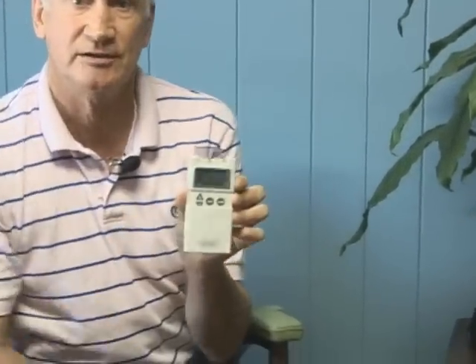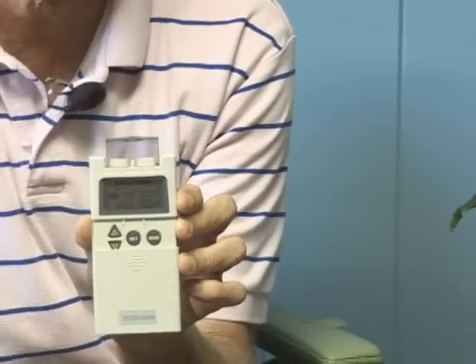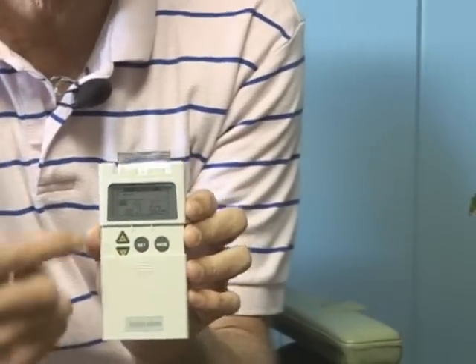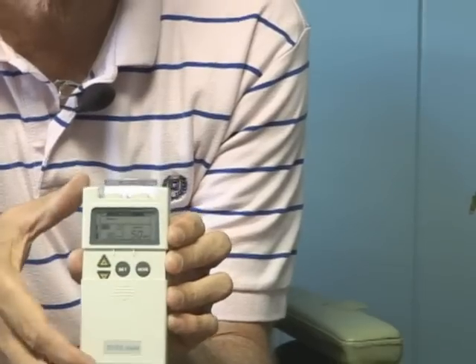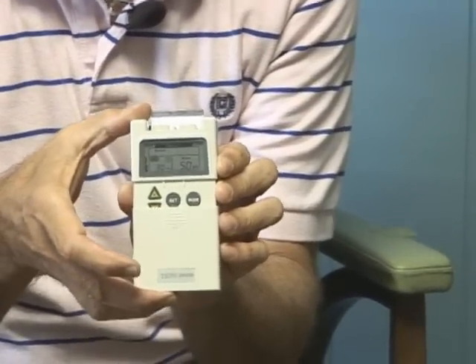The difference between an analog TENS unit and a digital TENS unit — this is a digital TENS unit — is that with a digital unit you have a screen and you press little buttons to see different settings like rate, pulse width, and changes on the front. For a lot of people, they don't like this. They don't like to press buttons, and it's hard to see the screen. It gets a little more complicated using what we call a digital unit.